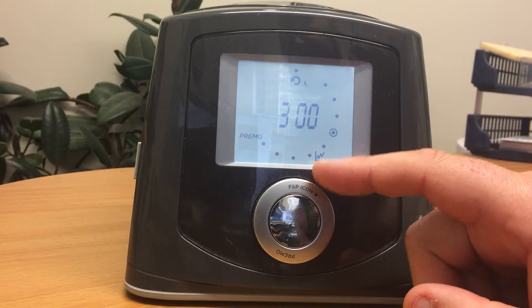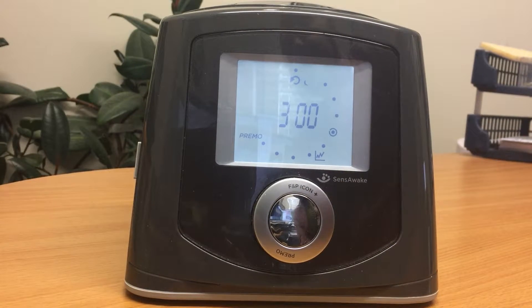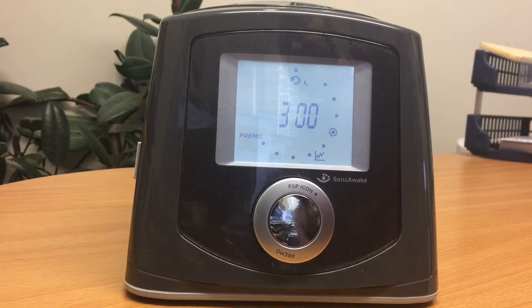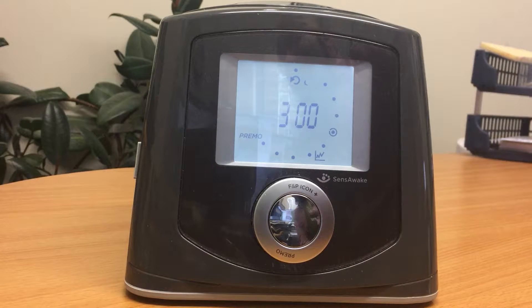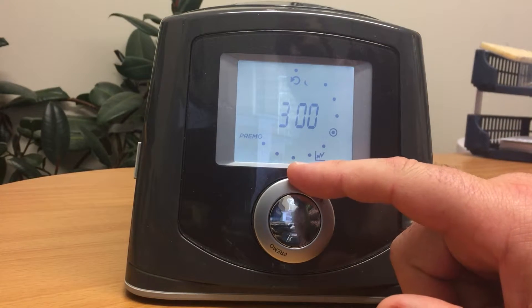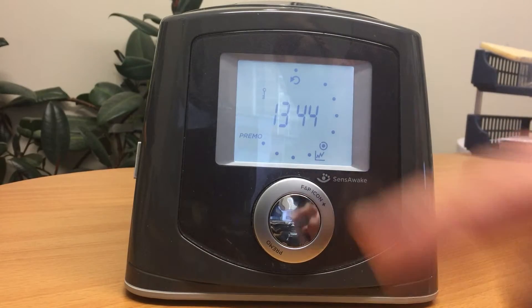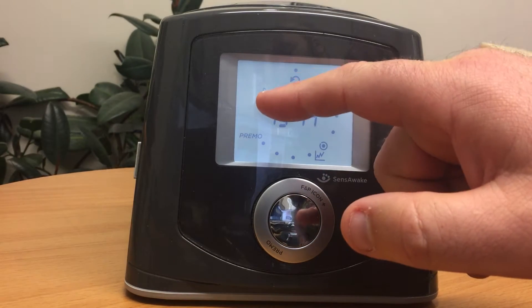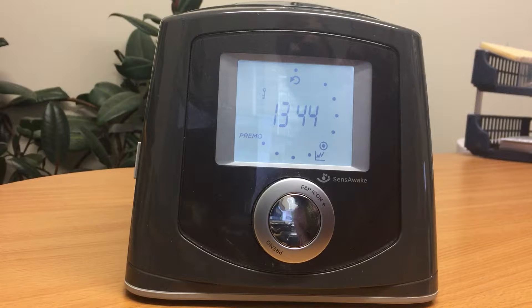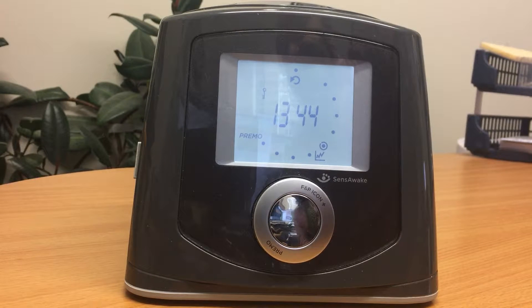The next setting tells you the number of nights the machine has been used — in this case, 300 nights. Turn the dial again and you get a checksum with a little key icon, which is a number that can be used to corroborate the other figures.